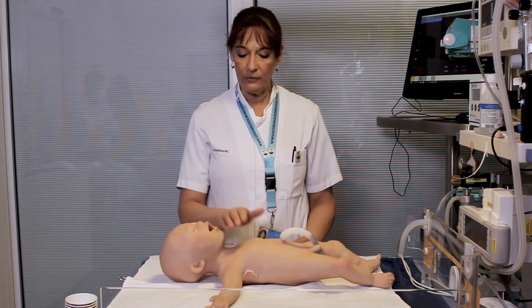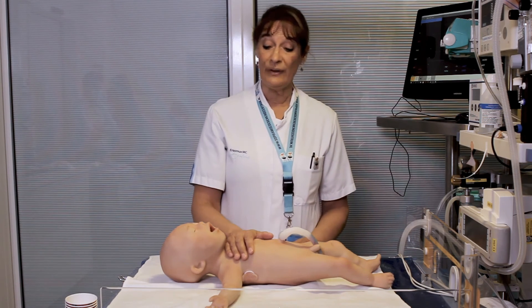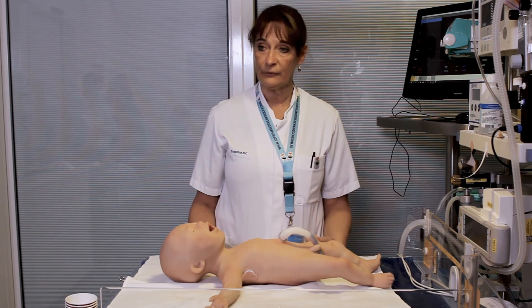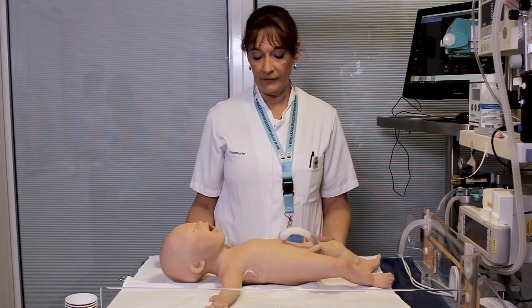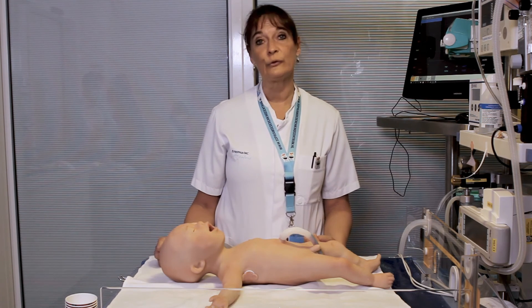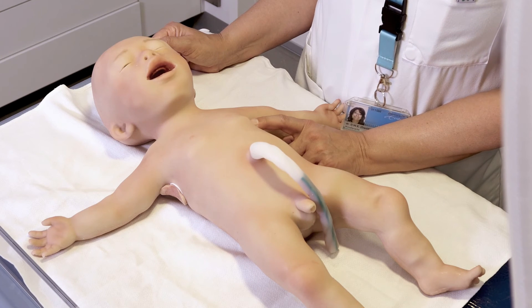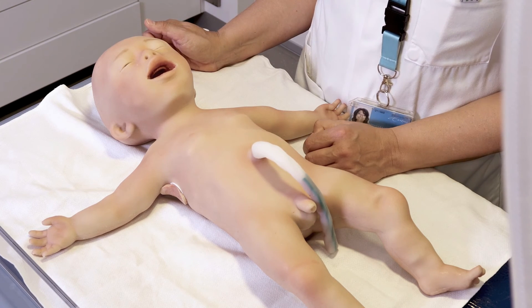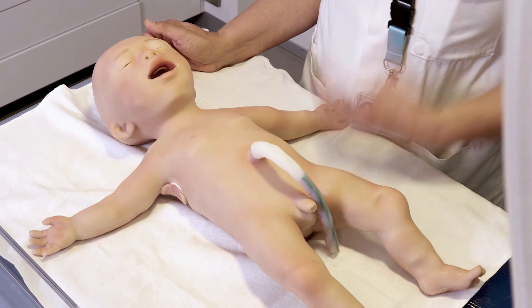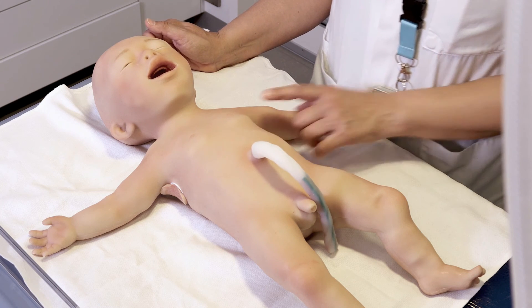Of course, you are also able to ventilate the baby, so you can see lung movements in different ways. You can listen with a special stethoscope to the lung sounds and also the cardiac sounds. You can see the baby moving — these thorax excursions are really clear to see.